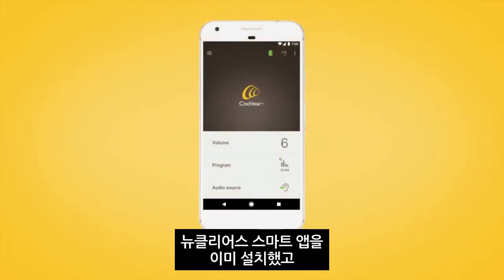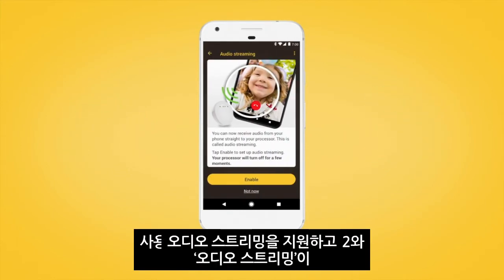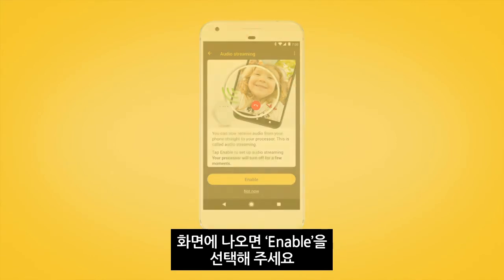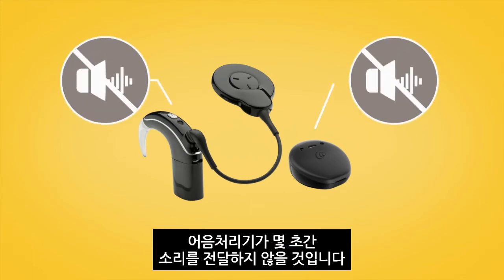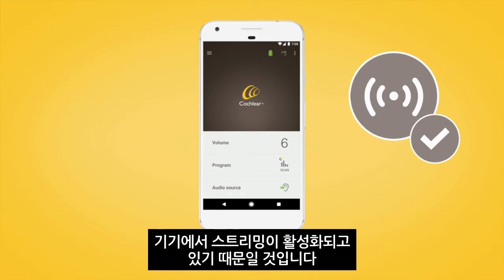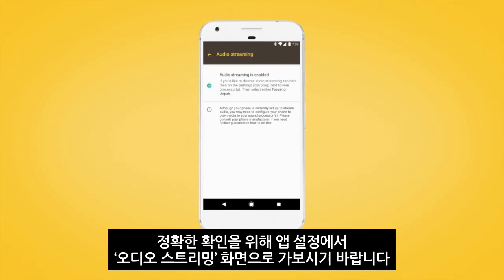If you have already set up the Nucleus Smart App and your Nucleus 7 or Canso 2 sound processor, and your Android device supports audio streaming and displays the audio streaming screen, tap Enable. If you chose to enable audio streaming, your sound processor will not deliver sound for a few seconds. If you don't see this screen, it may be because streaming is already enabled on your device. You can go to the audio streaming screen in app settings to learn more.